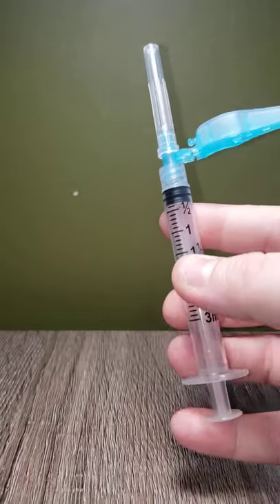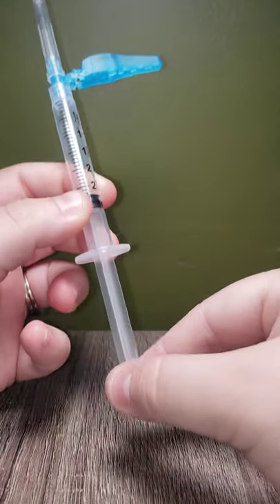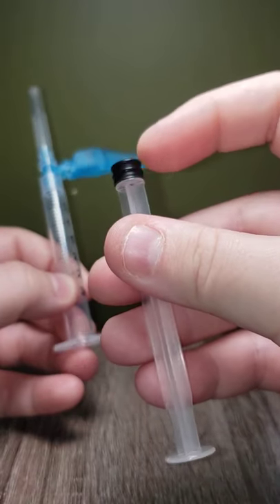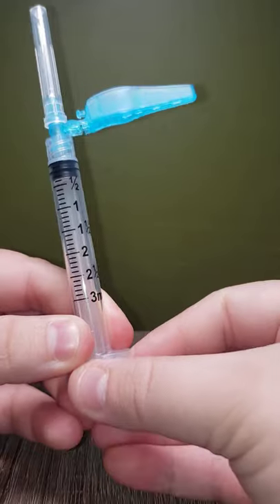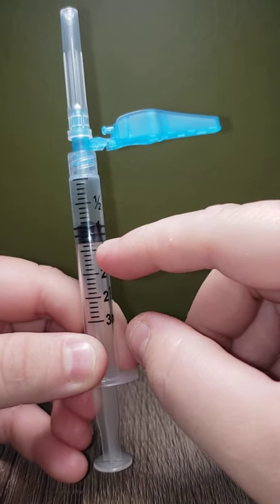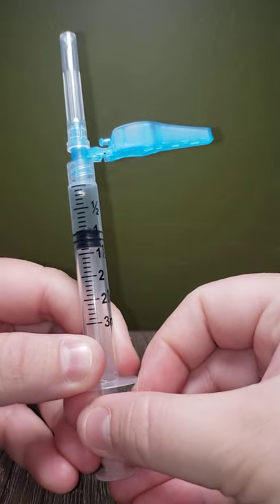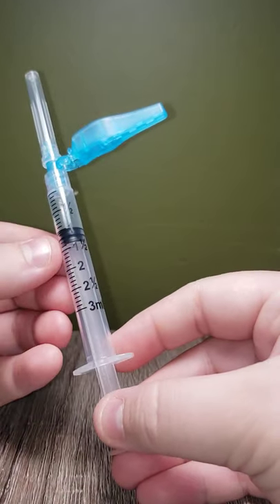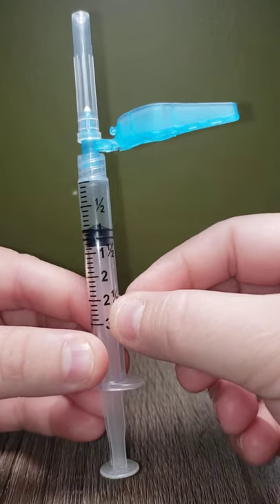How do we measure medications? Here's the plunger — this part that I'm pulling down on is the plunger. It's just a simple plastic rubber piece that goes in here, and you measure medications by the top of the plunger. So if I were to draw one ml of air, right there — that is an accurate measurement. You do not measure down here. The medication doesn't touch down there; it touches on the top of the plunger right here. So that's where we want to make that line even to the one ml region. That would be the proper way to look at a plunger and the barrel, which is right here. This is the barrel — it's a plastic piece that is measured. That's how you properly measure medication.